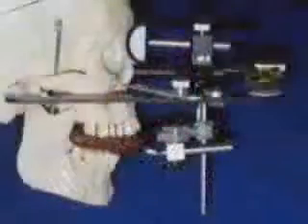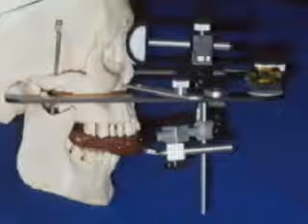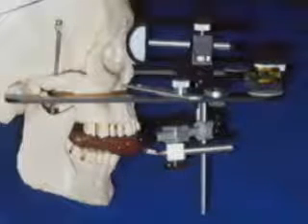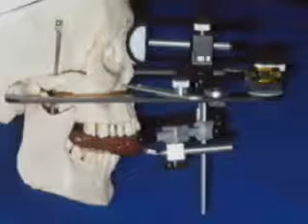Previous research has cited the inherent errors and complications of these procedures. Currently, all ear bow techniques transfer an arbitrary or average hinge axis location by referencing an approximation using the patient's ears.